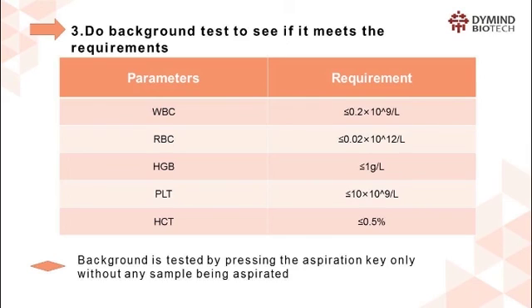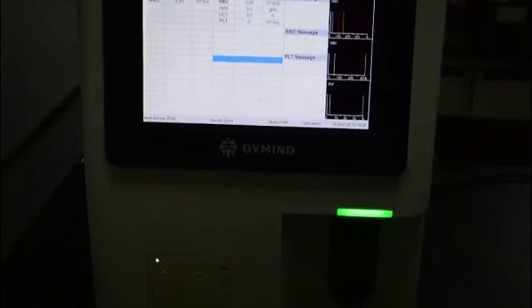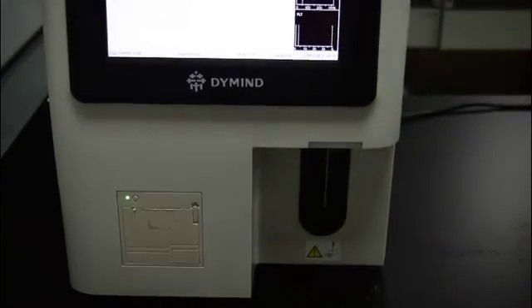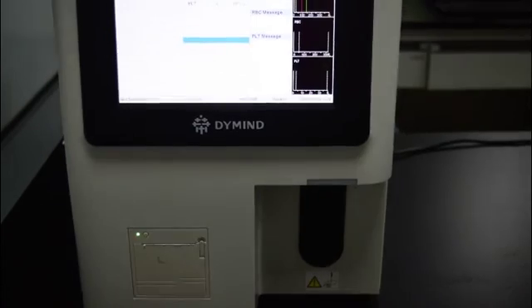Step 3: Here are requirements for normal background. Run three times test to confirm that there is no abnormal background. Press the Aspiration key only, without any sample being aspirated.